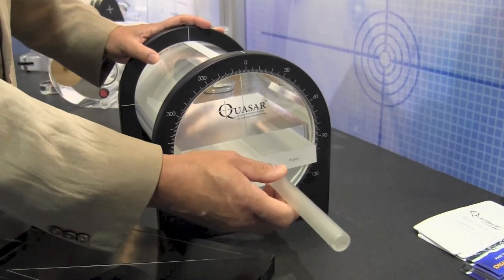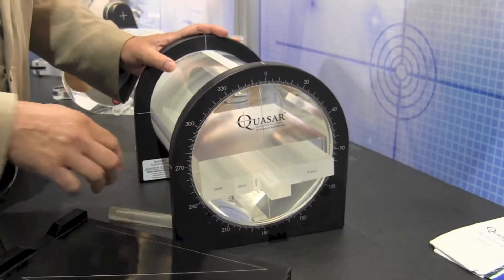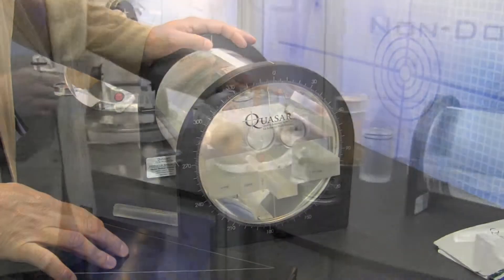The chamber can be repositioned within the Phantom to different positions to confirm the dosimetry for patients. Thanks very much for viewing these videos.